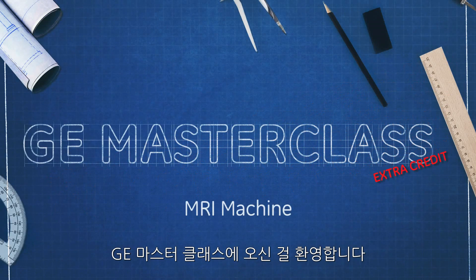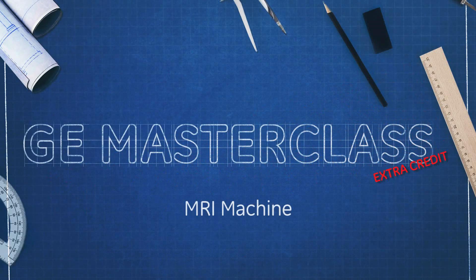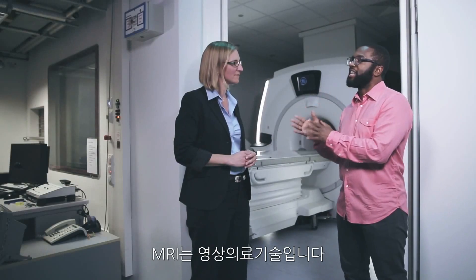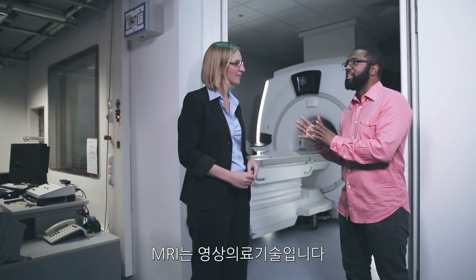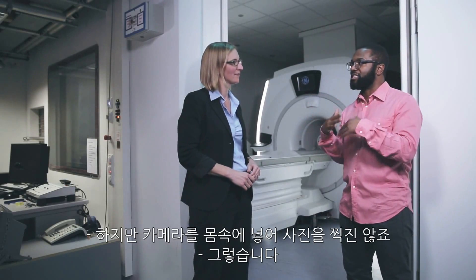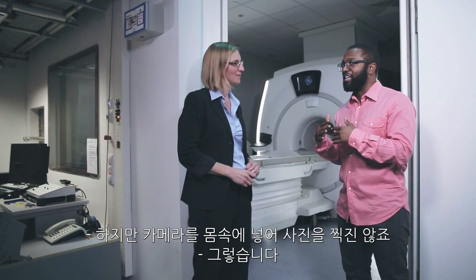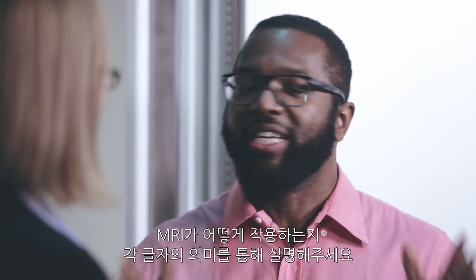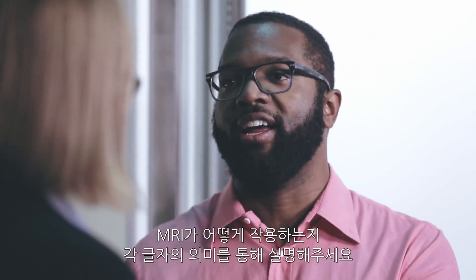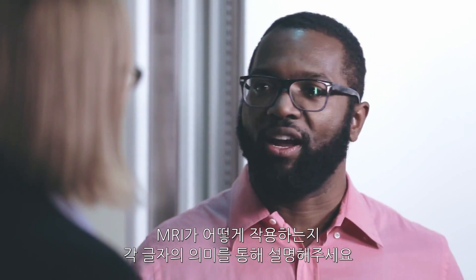This is GE Masterclass. It's an imaging technology, but you're not sending cameras inside my body to take pictures. We're not. Talk me through the M, the R, the I of how an MRI actually works.